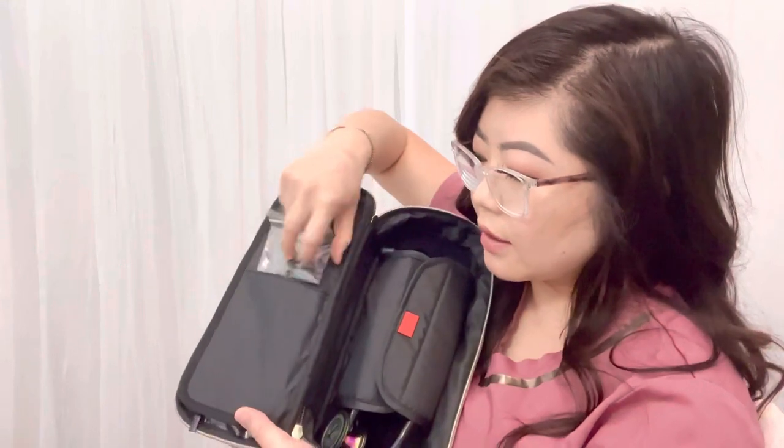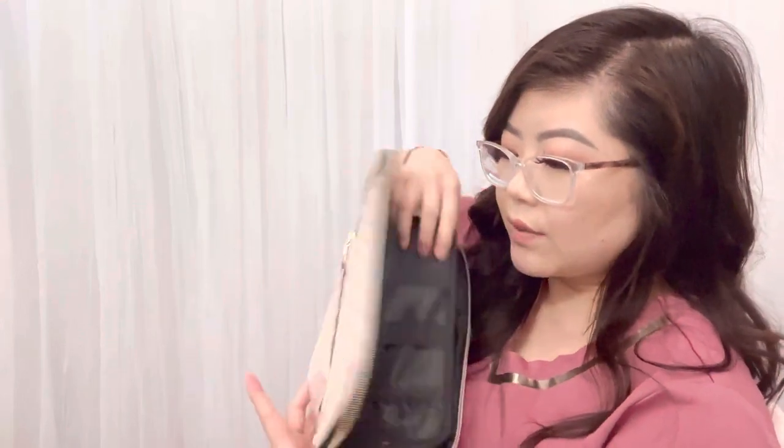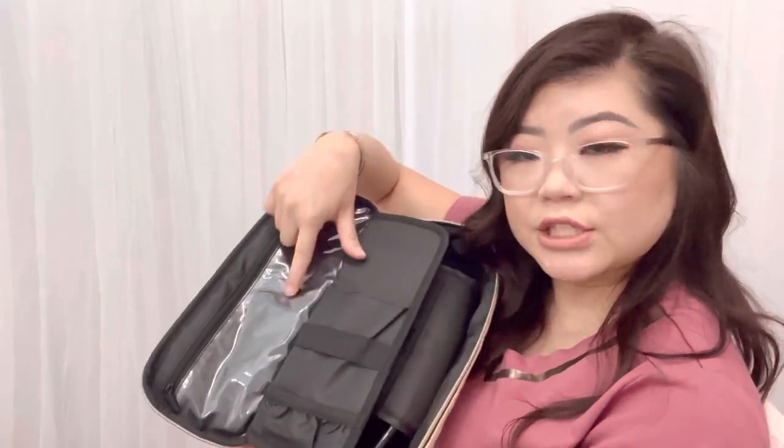I just put the curl on and it fits perfectly. With these I'm planning to put them in the case just in case I need them. I think I'll put them right here, or if I need to make use of that space I'll move them to this little section. But for now it's okay because I haven't bought much stuff yet.